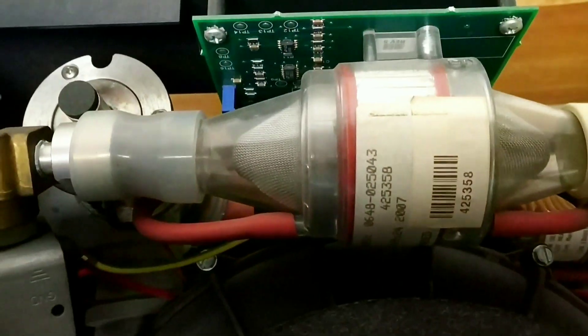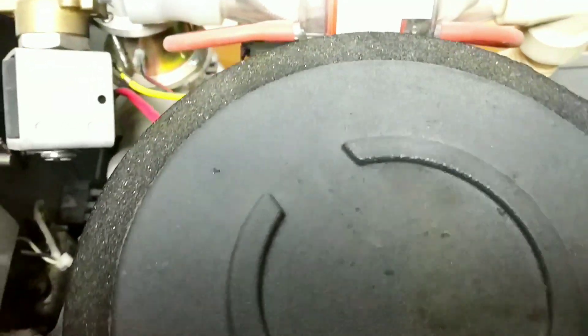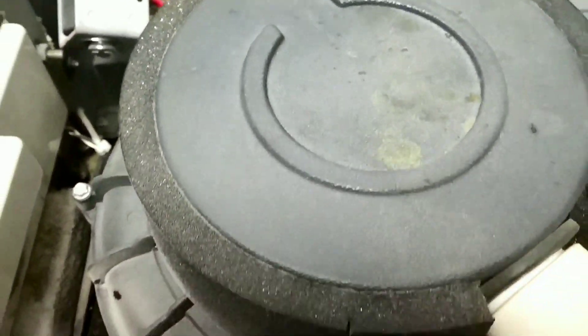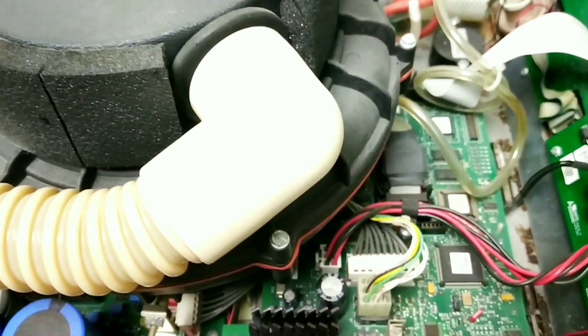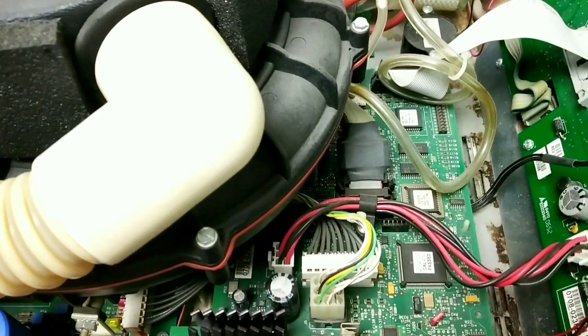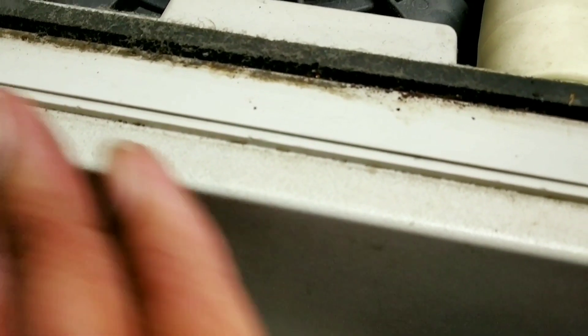First, we will have just an overview of the opened ventilator so you can become familiar with the structure, and then we will start with the labeling and identifying the things in it.